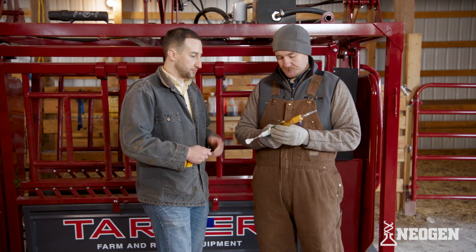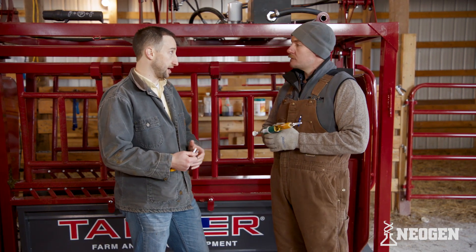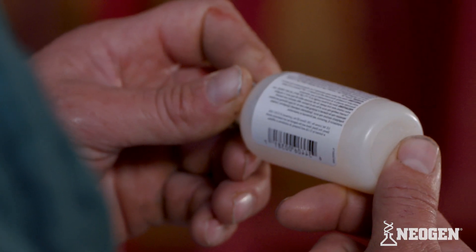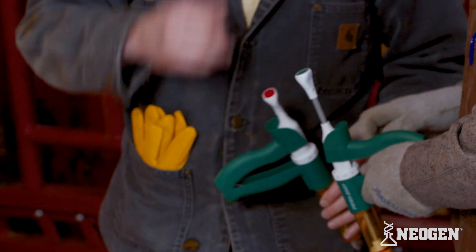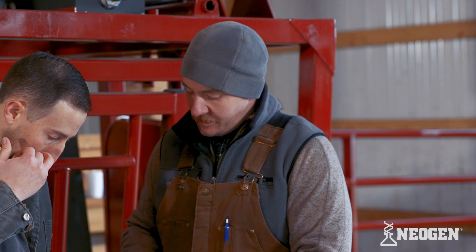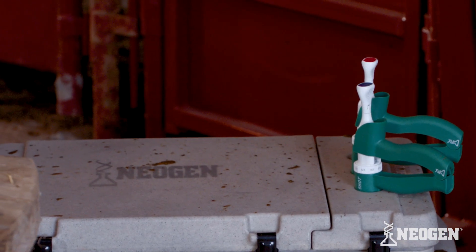When we think about these multiple-dose syringes, we might have a couple of different things for giving cows — whether that's vaccinations or antibiotics. Is there a lot of worry about mixing up these syringes or keeping them separate? It's always important that we make sure we know what we're injecting into that animal. These Prima shot guns have little ends that can be changed in and out for different colors, so you can use different vaccines with different colors, and that helps you keep straight what you've got in each syringe.